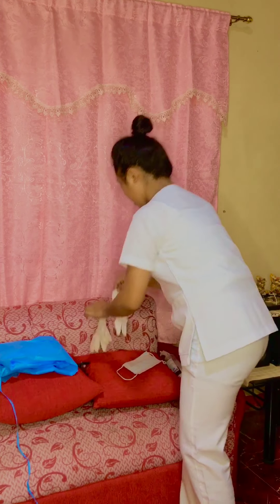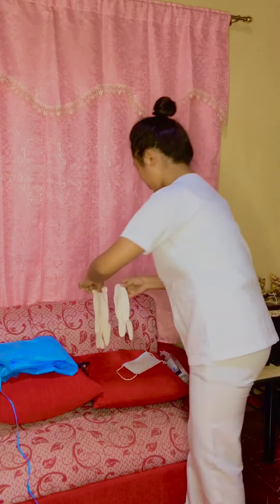Hi everyone, my name is Betty Mayhew Hernandez, first year college from BSN 1D. So now I'm going to demonstrate to you how to properly apply and remove the PPE, which includes this PPE lab gown, a PPE gown, face mask or mask, gloves, and eyewear.